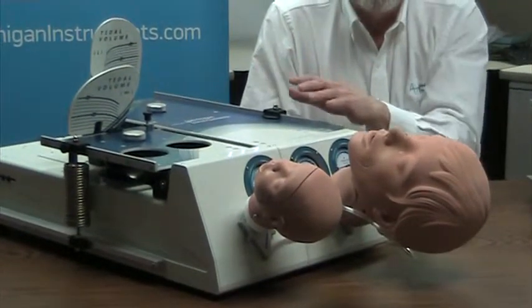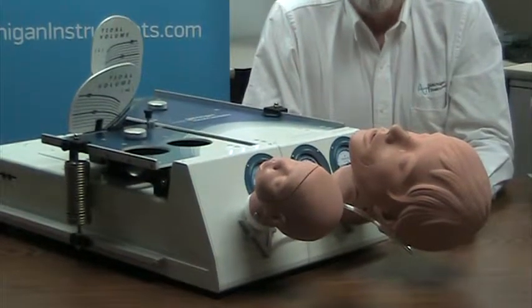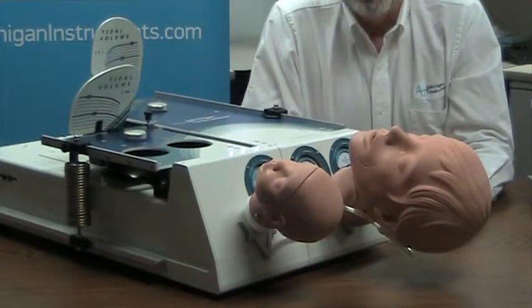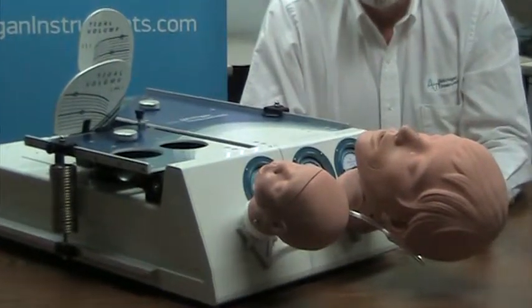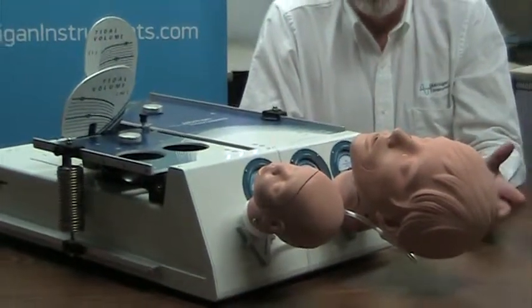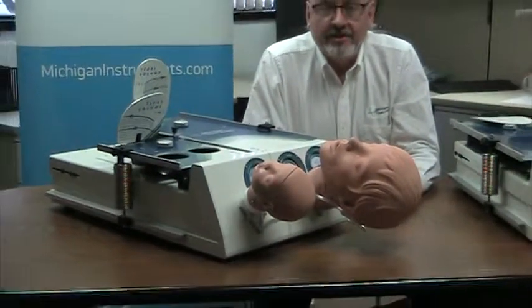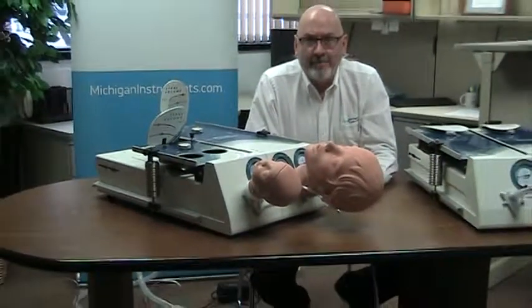The adult infant is available from Michigan Instruments in both the TTL configuration and the NuView configuration. If you have any questions about this, please contact our offices or take a look at our website at www.MichiganInstruments.com. Thank you.